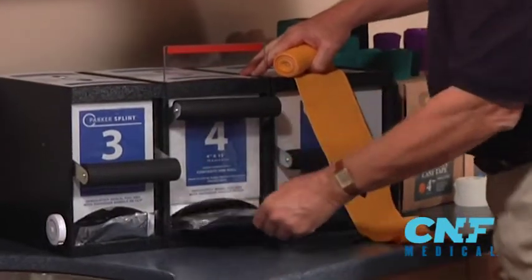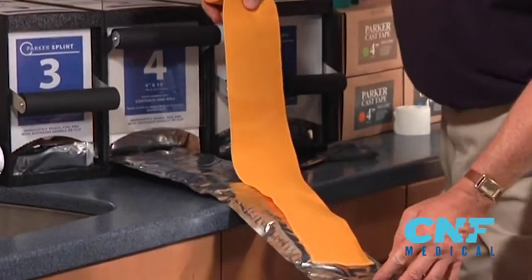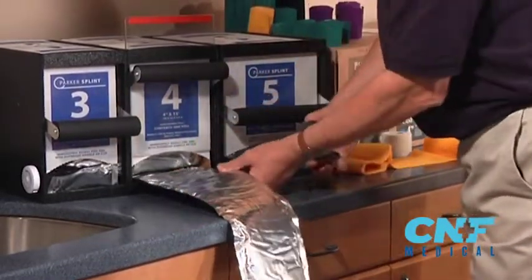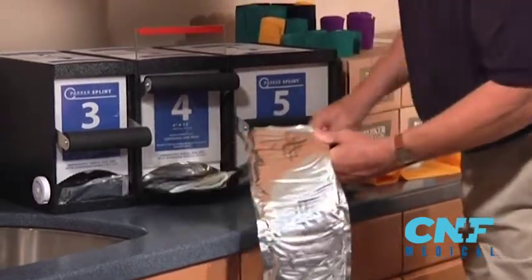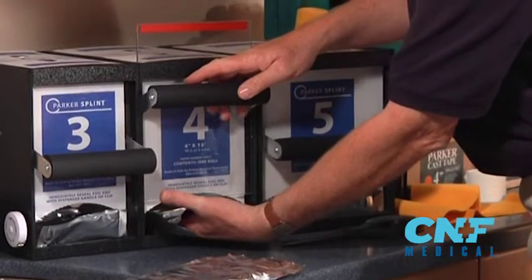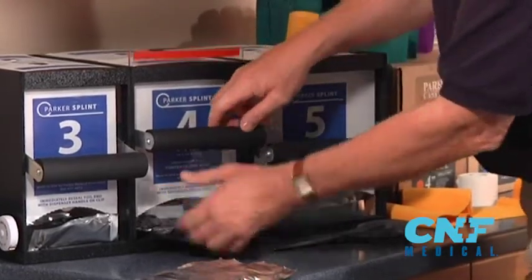Open this up and pull it out. Right from the end of the foil — even though you pushed it back in, this is where you last cut it. That should be the end of the product. Try to cut it out as close to the box as possible; that's less you have to push back in. Push it back into the box, keep your fingers there so when you bring the door down, your fingers feel it and the product is behind the door. Make sure this red line is gone when you seal it.